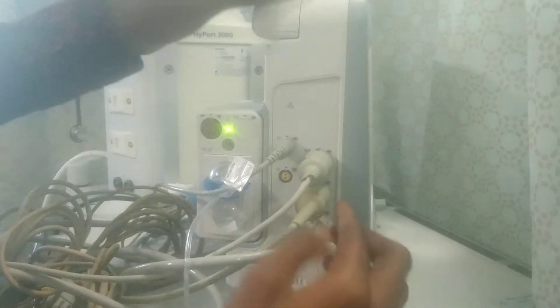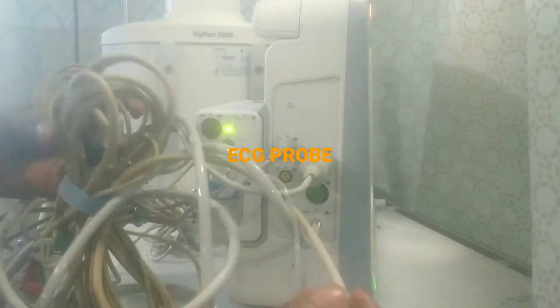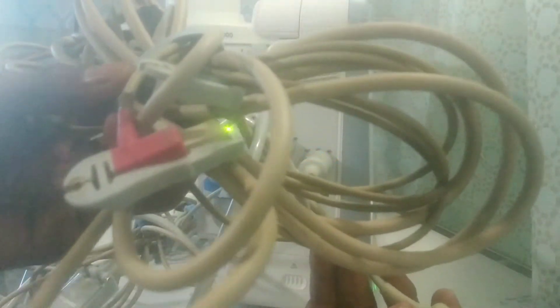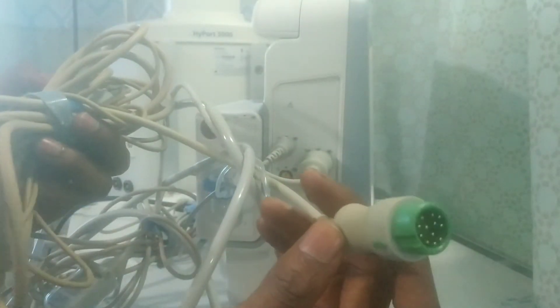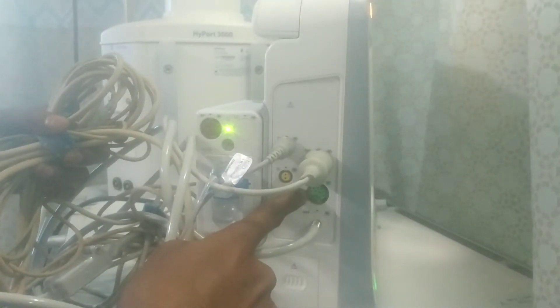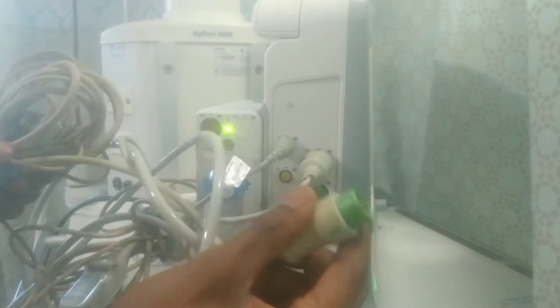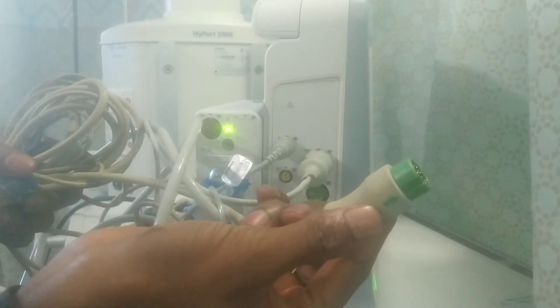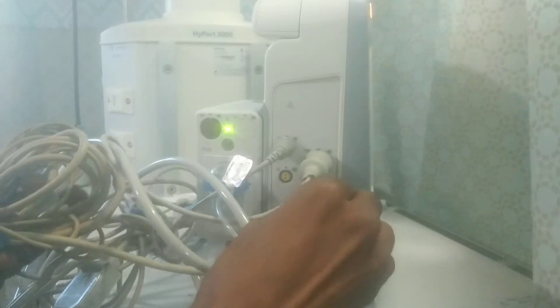This here is the ECG probe. These are the parts that are connected to the patient for monitoring the ECG. This is the ECG connector and this is the ECG port on the machine — you can see 'ECG' written there. There is also a direction indicator that tells you which way to connect it, so you just connect it right there.